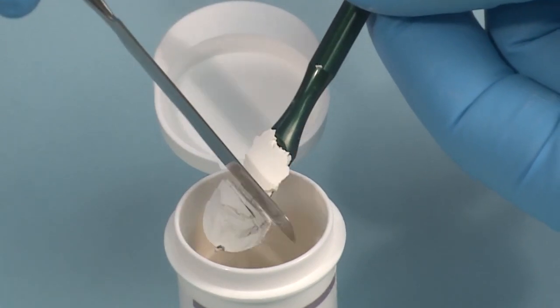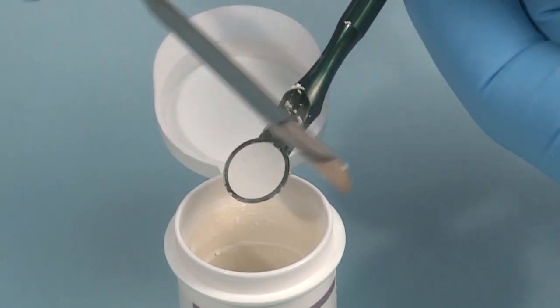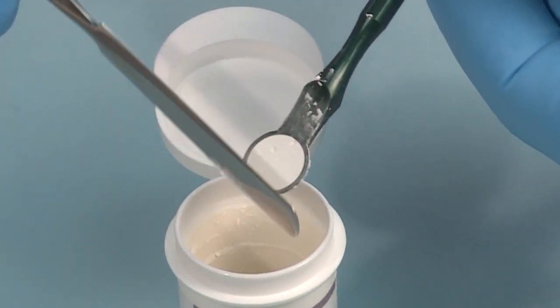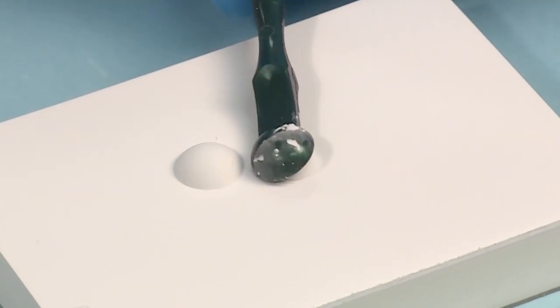With the help of a spatula, take the powder and the liquid measure according to the desired consistency for each clinical situation. In this demonstration, we use a thin consistency.